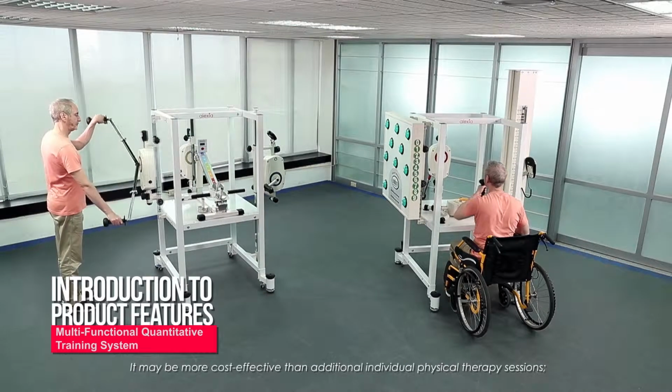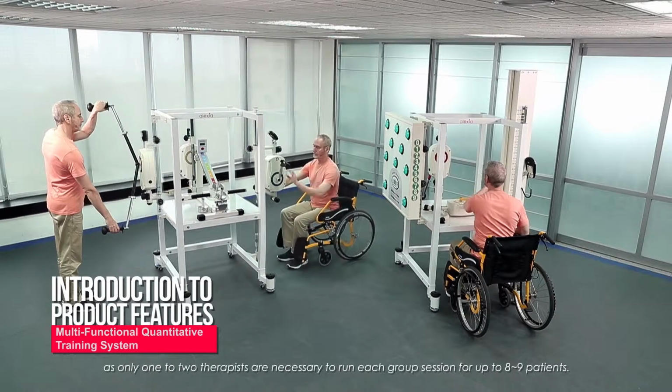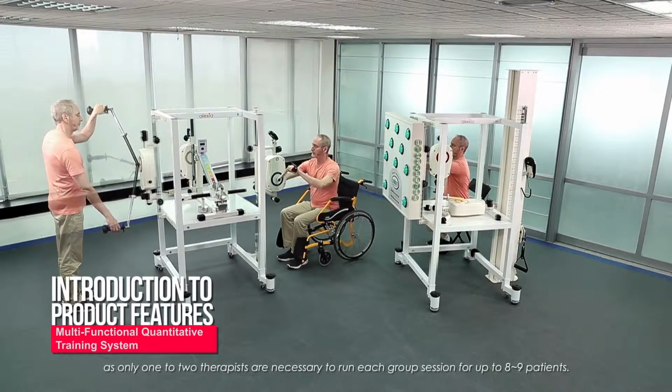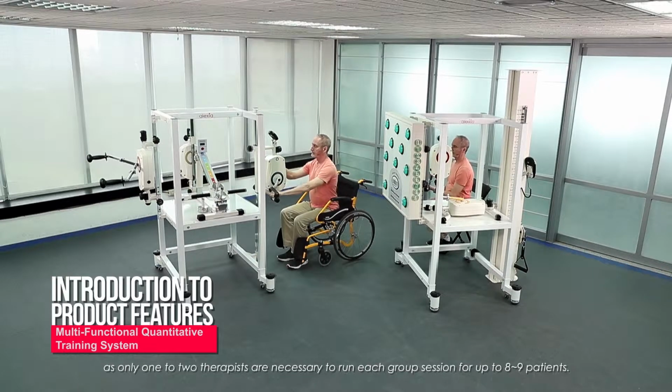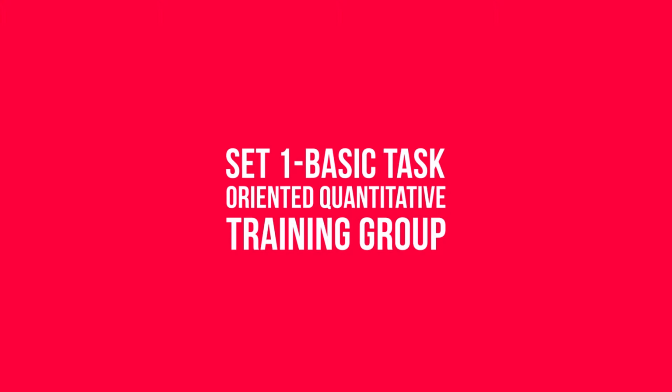It may be more cost-effective than additional individual physical therapy sessions, as only 1 to 2 therapists are necessary to run each group session for up to 8 to 9 patients. Set 1. Basic task-oriented quantitative training group.